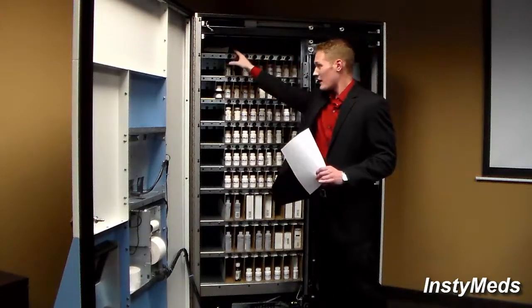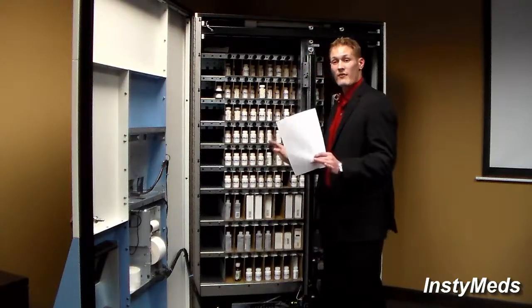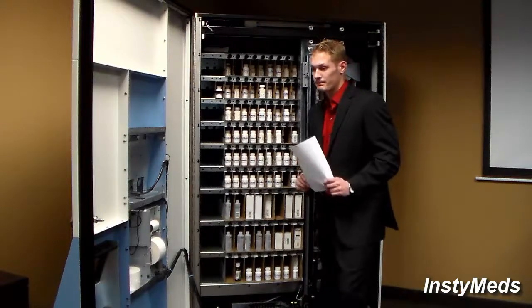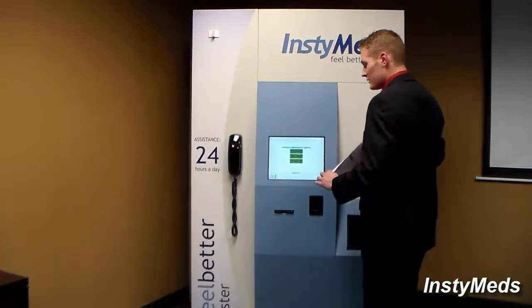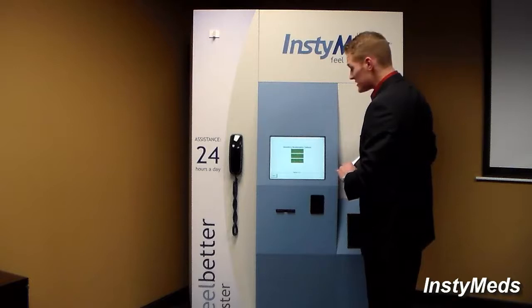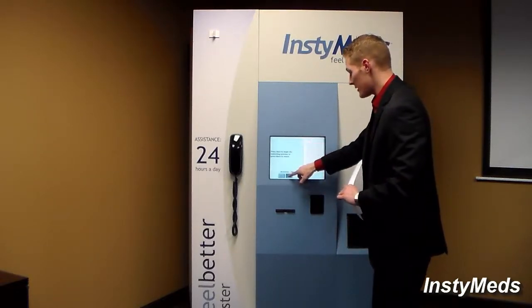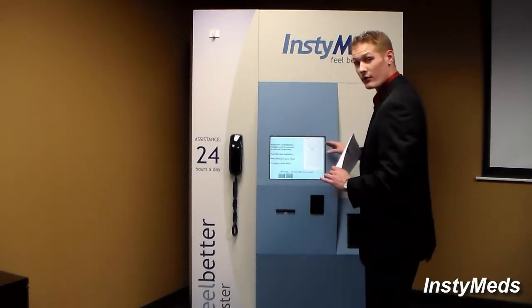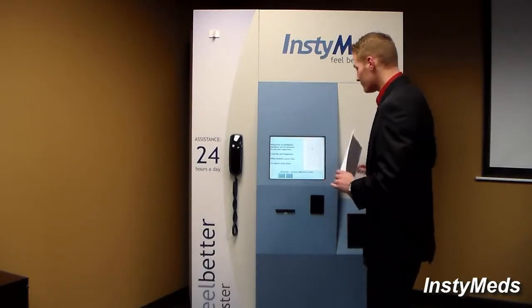So up top and on the side is extra storage locations. So now that we have that covered, I'm going to go back to the screen and we are actually going to be doing some restocking. So what I will do first is actually press the restock button. So this screen, after I press start to begin, will actually tell me exactly what I needed to do. Based on the color code, it will tell me what I need to remove and what I need to add.